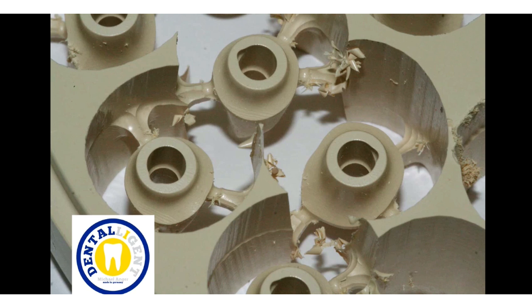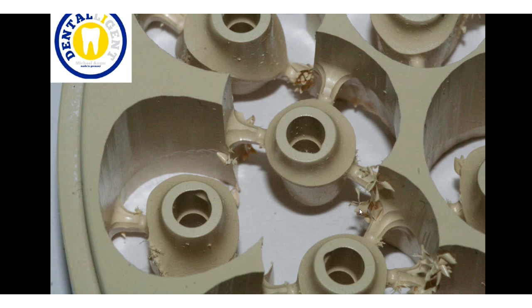Also the inner surfaces of these abutments are milled very clean, and it was no problem to set up these PEEK abutments immediately after milling to the bonding basis. Here no rework was necessary. Only in the area of the two-millimeter milling cutters, larger sprue volumes are occasionally seen at the connection points of the ridge. At the abutment itself, this is not recognizable.